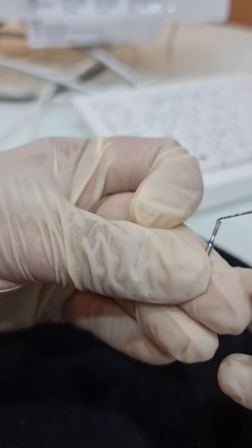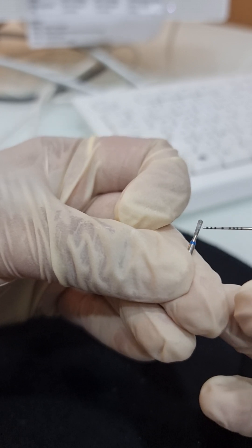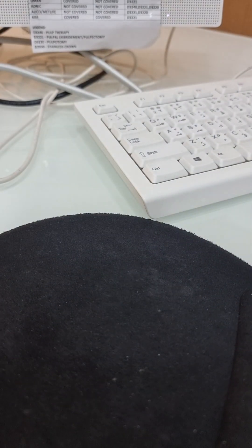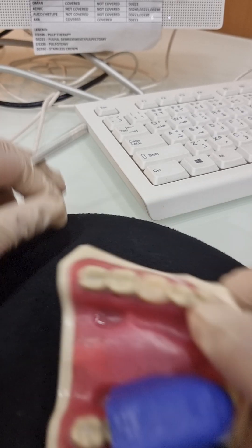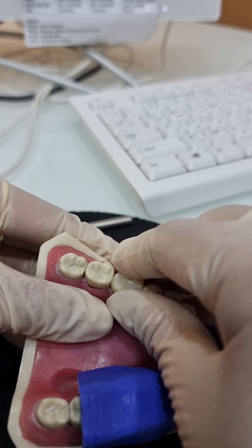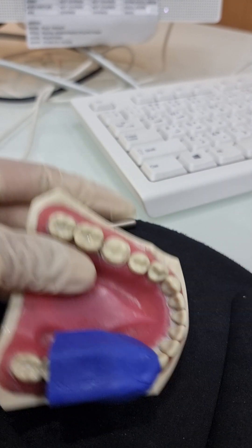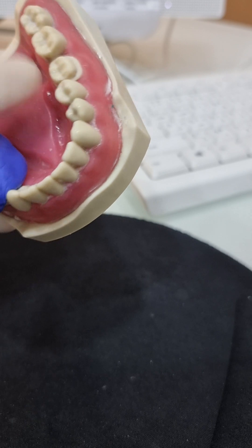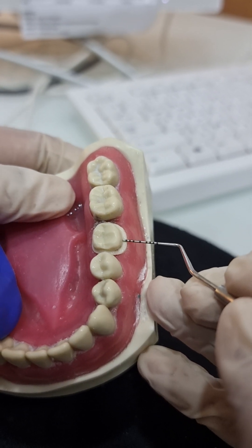This is a round-ended small straight fissure burr, which will be used for refining the margins of your crown prep. Let me show you one of the crown preps I've done - it will help you understand the use of this burr. Today I also shot a video of how Type 2 candidates like me, who have a lot of other responsibilities, should approach the exam, and that made me feel like sharing more of my tips.